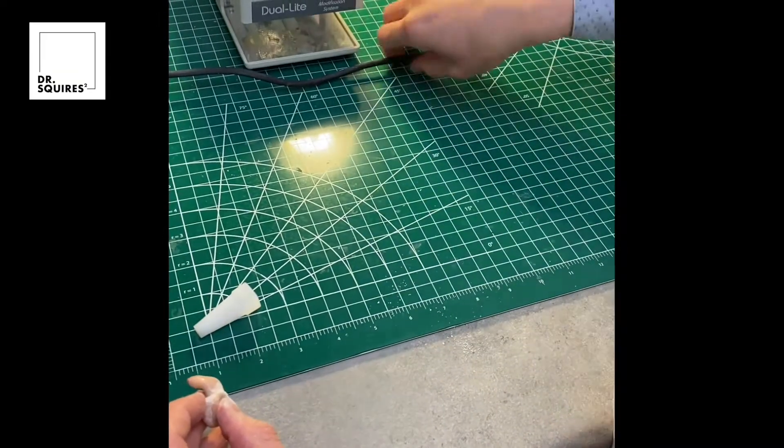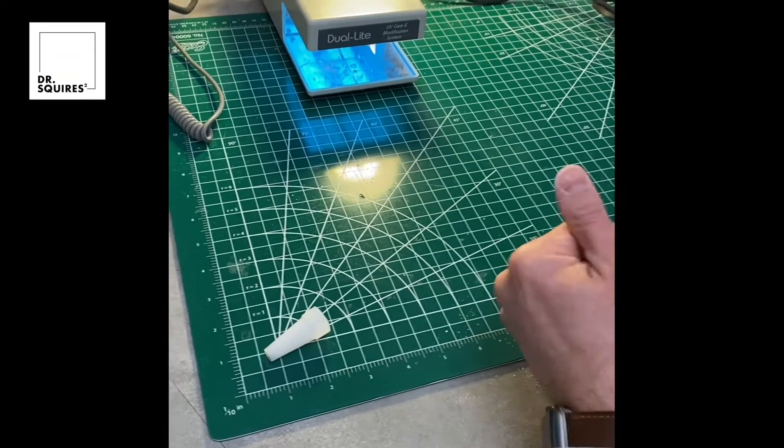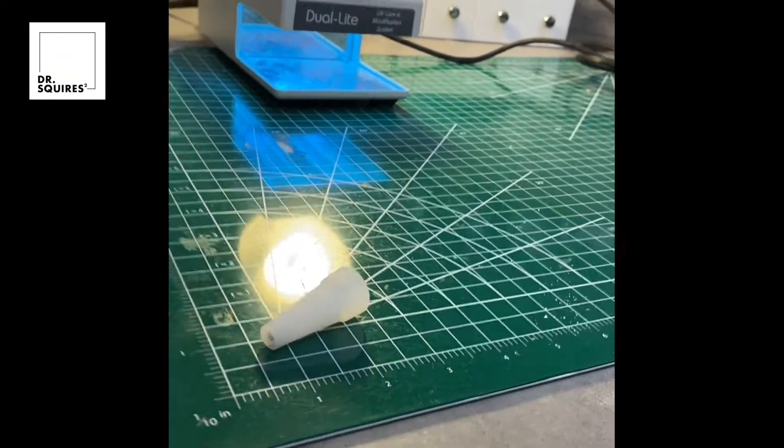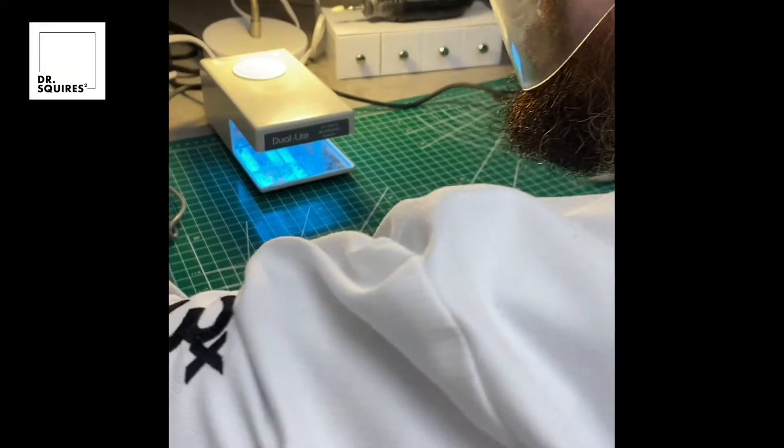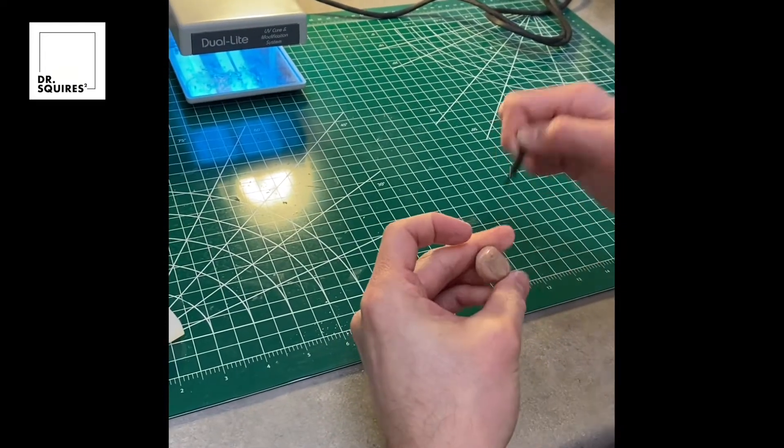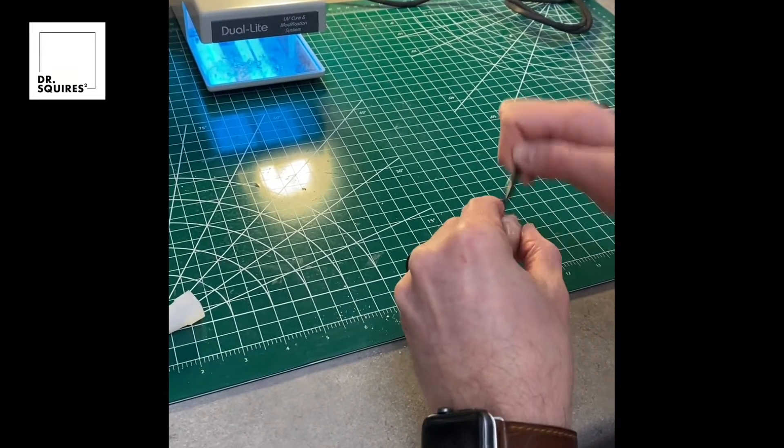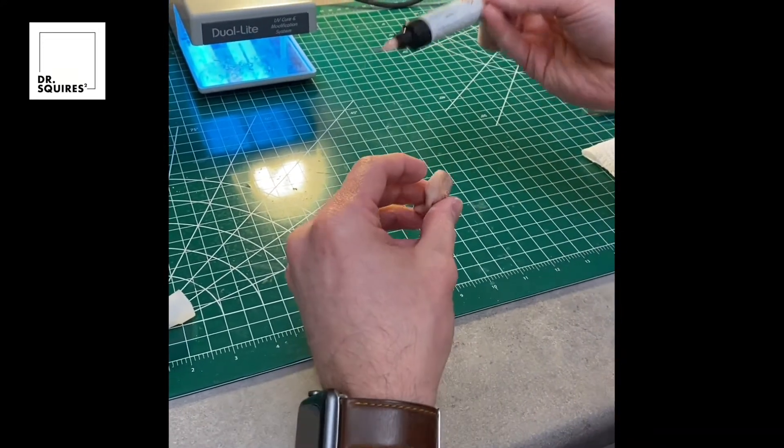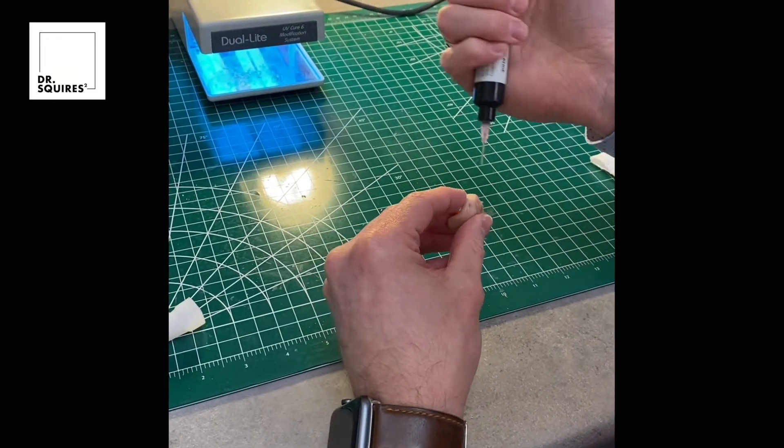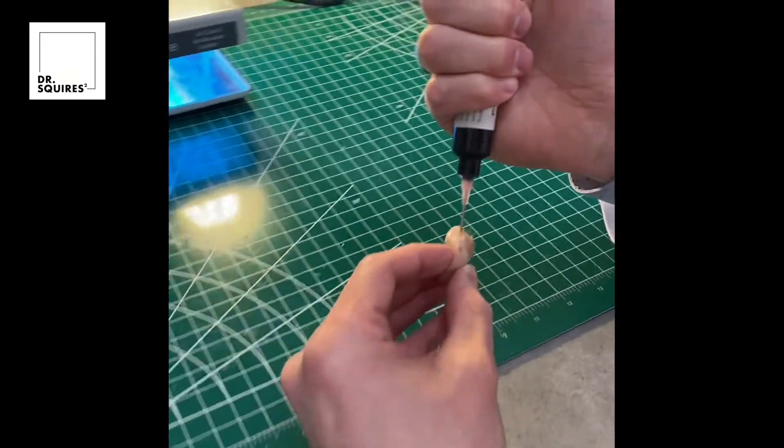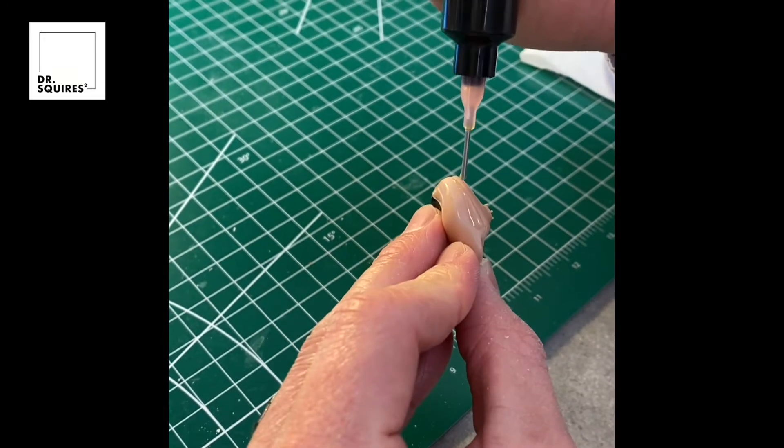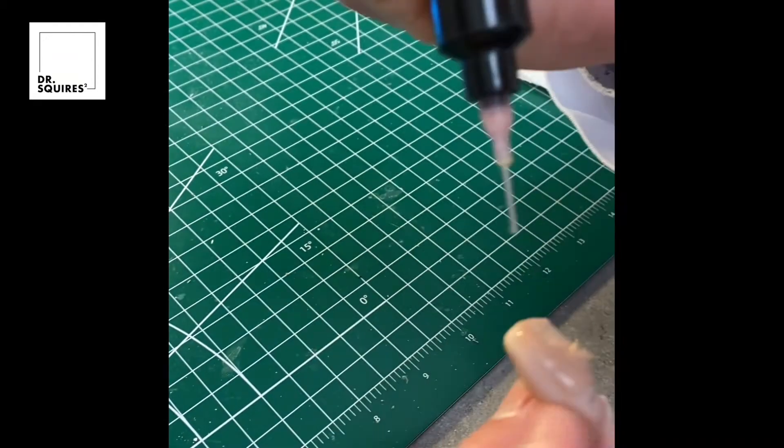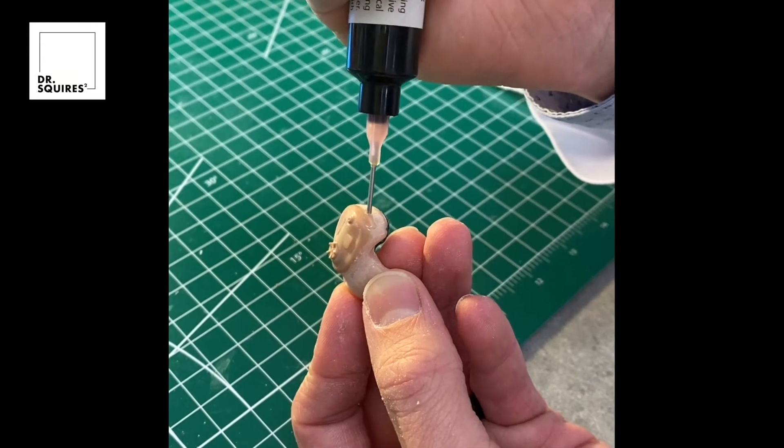Now that we've got that face plate adhered down and all of the instant glue is dried, I've turned my UV light on. This is just a commercial UV light you can get anywhere, but the adhesive that we're going to be using is a UV cured acrylic type material. This comes in different shades or hues or colors. The one we're going to be using is a beige tone so that it blends everything in. I'm going to start flooding that little crack with a little syringe containing that UV adhesive.